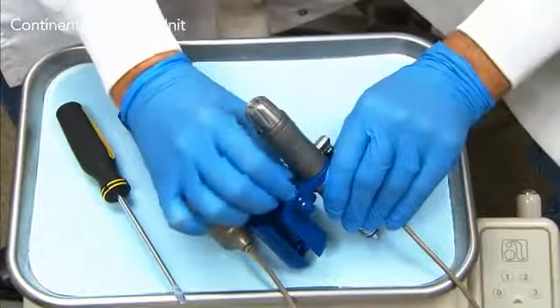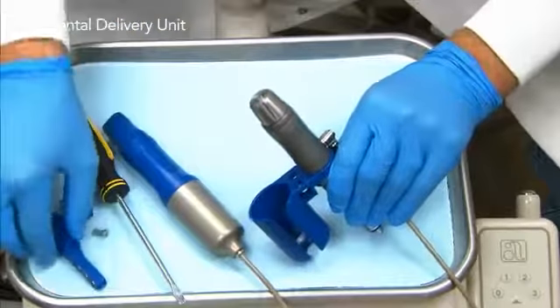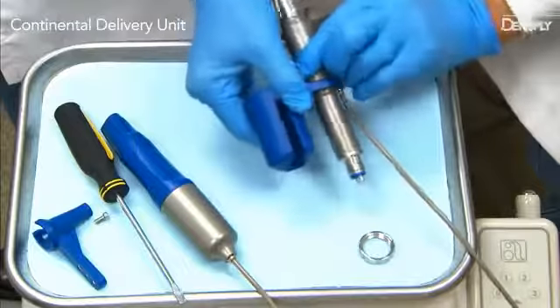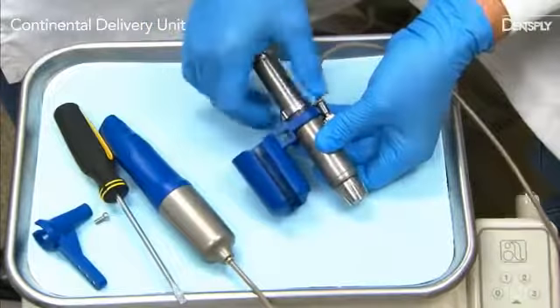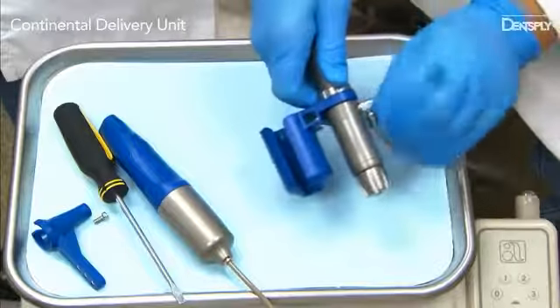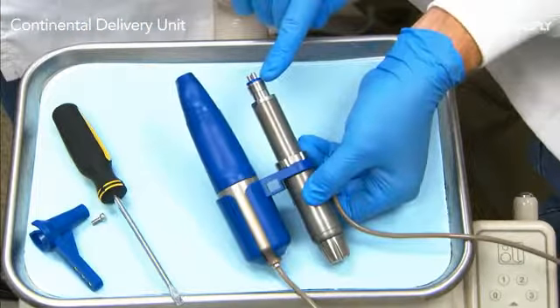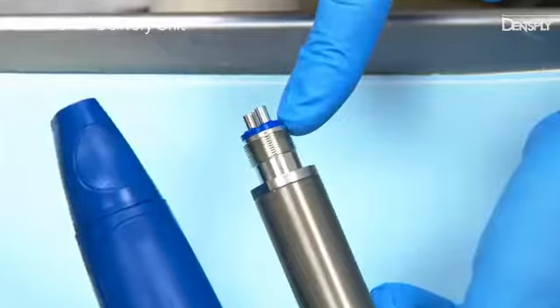Remove the arm from the adapter by removing the screw. Next, unscrew the locking nut from the lower portion of the regulator. Place the regulator in the adapter with the regulator knob facing down. Finally, reinstall the nut. Put the dispenser in the adapter with the dispensing end up. The air delivery tube will fit through the front slot and exit the bottom. Connect the dental hose to the regulator, which can be connected to an ISO threaded connector or a quick connect coupler.